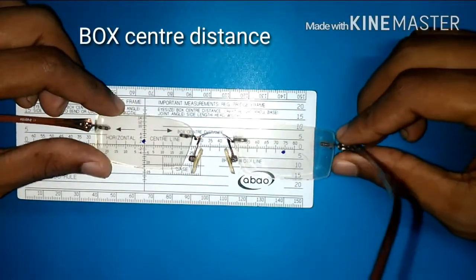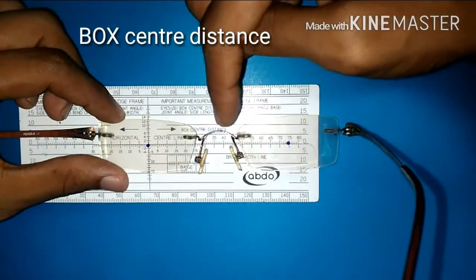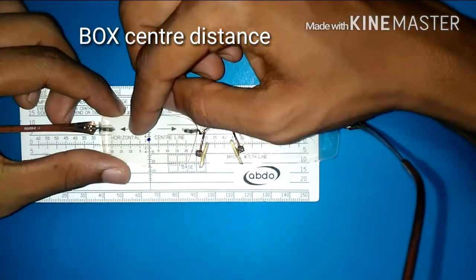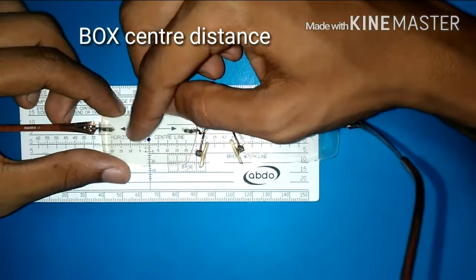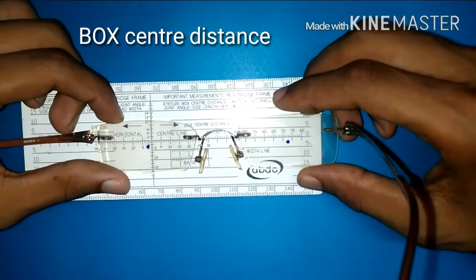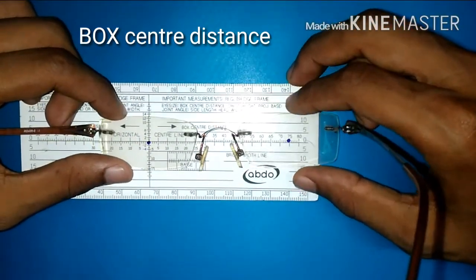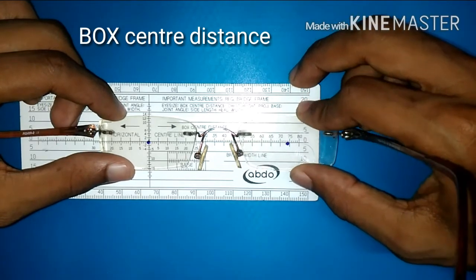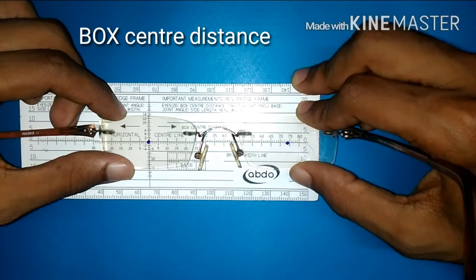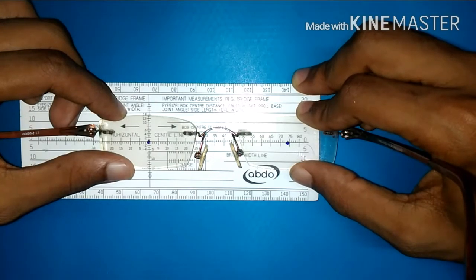The box center distance is the distance between the two lens box centers. Place one side of the box center at zero and try to measure the other side where it ends — here it is about 74mm.